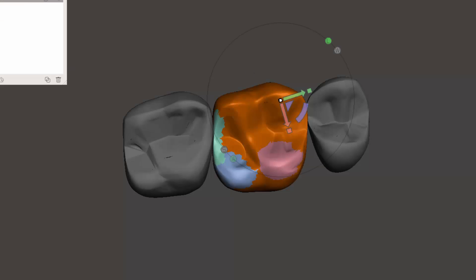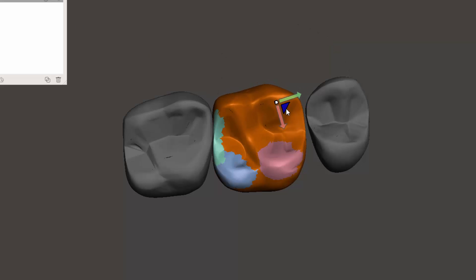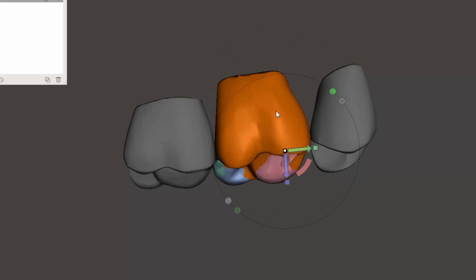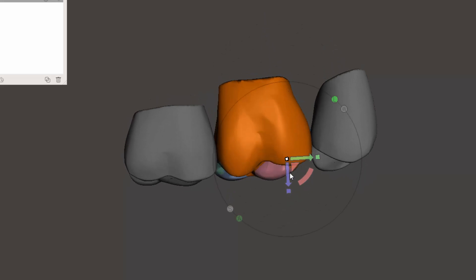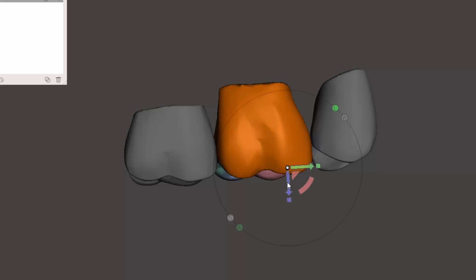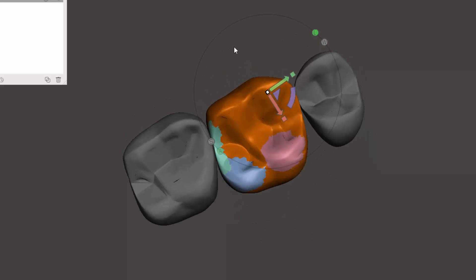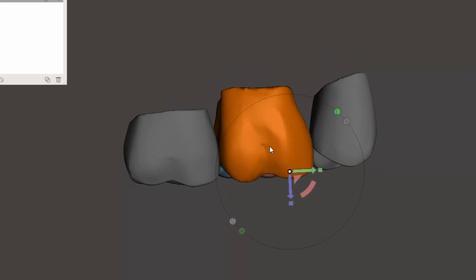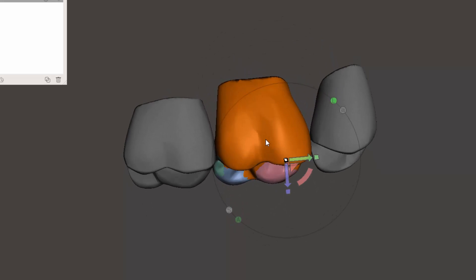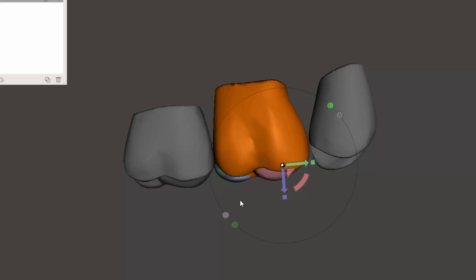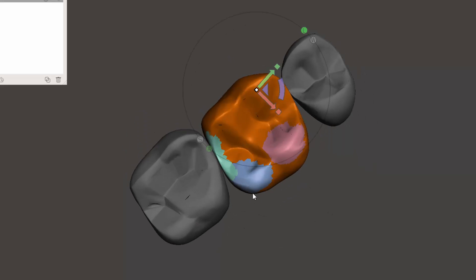And you can change the fall off. You can do things to make it not quite as extreme, but here's what happens, as you can see. We can move this area. I can pull this specific cusp down. So now we can go ahead and accept that.